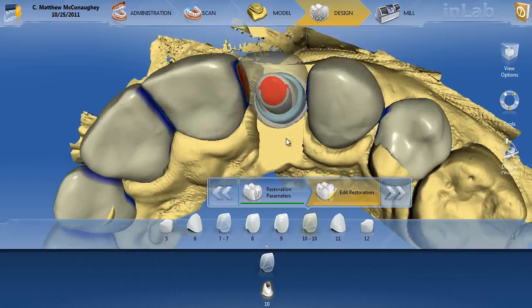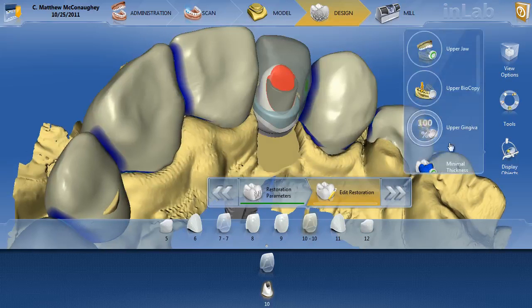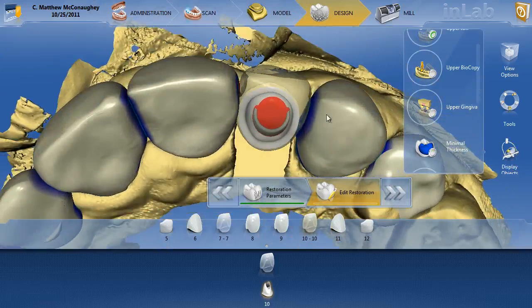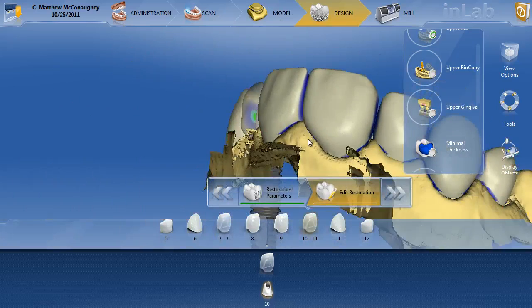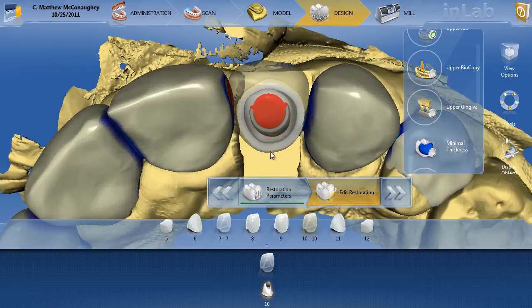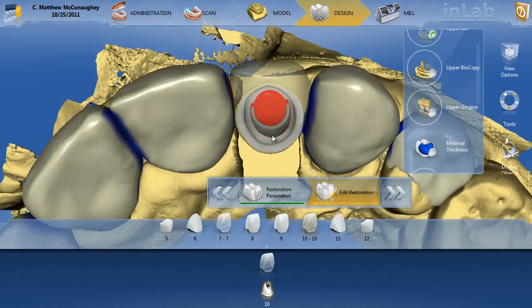You can see that we're having some minimal thickness issues. We also see that we have the titanium base sticking out the back of that custom abutment. Even though the implant was placed very nicely, when you're doing custom abutments and angled custom abutments in the anterior, sometimes you'll run into scenarios where the path of the implant — if we look at this side view — is in a position where trying to align it underneath a biocopy or wax-up gets difficult. You're never going to be able to use this biocopy — you'll end up having to re-scan the abutment.